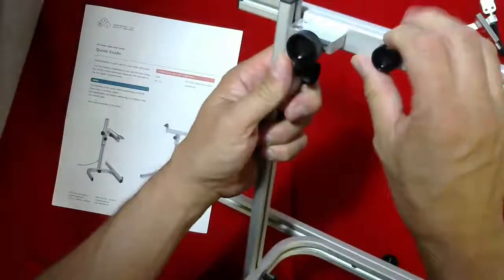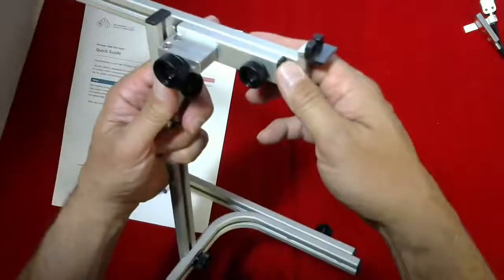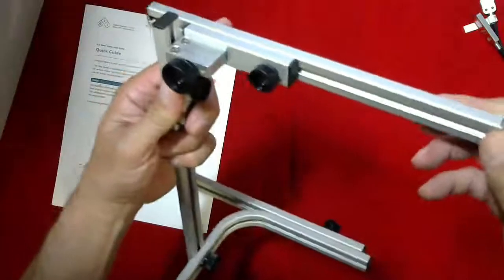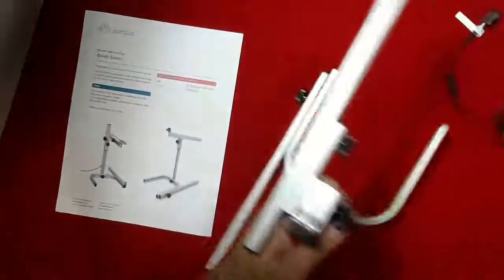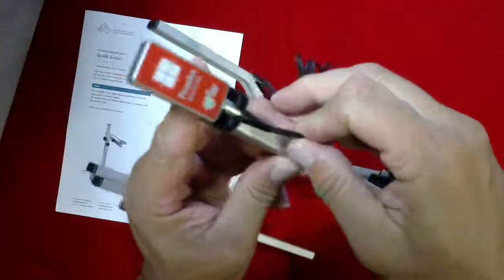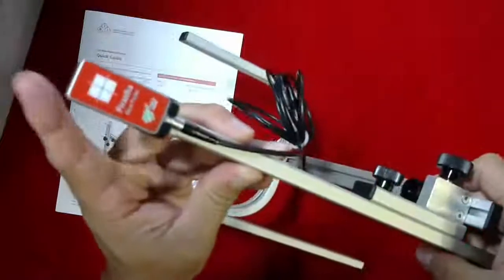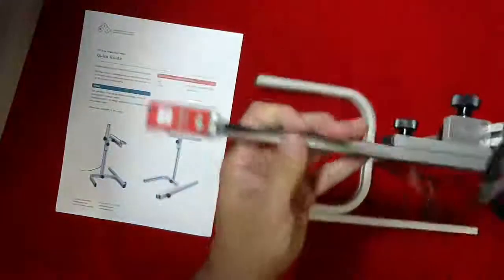I'll show you this side here. There's an adjustment so you can slide the actual detector in this specific position. I'll show you how to put the detector on. There's a little front part here, a plastic piece, and the detector cable slides through that and just clicks into here. It's very easy to position the detector.